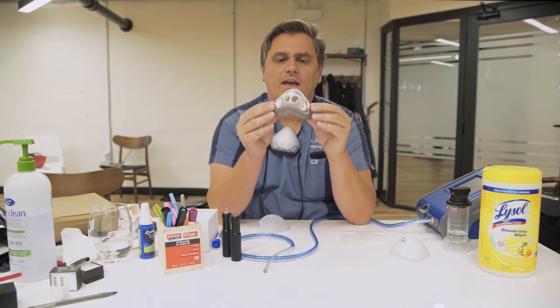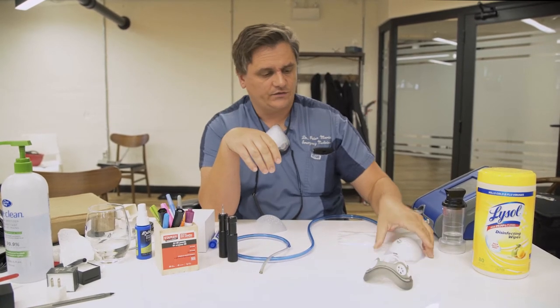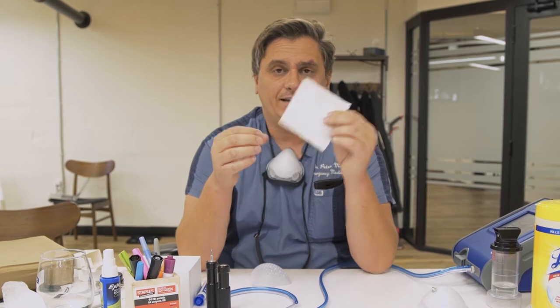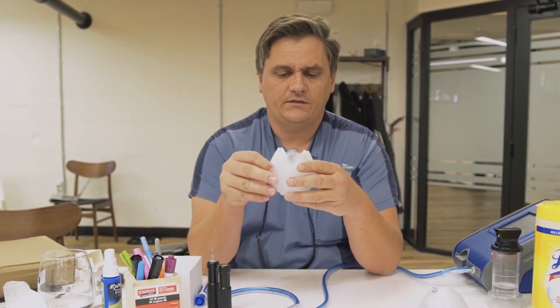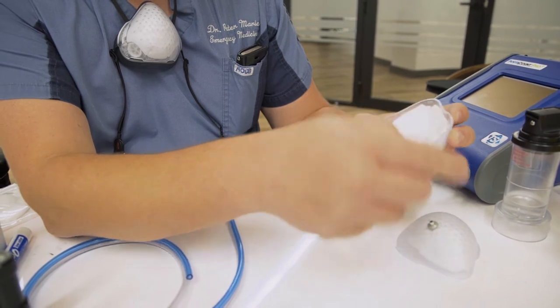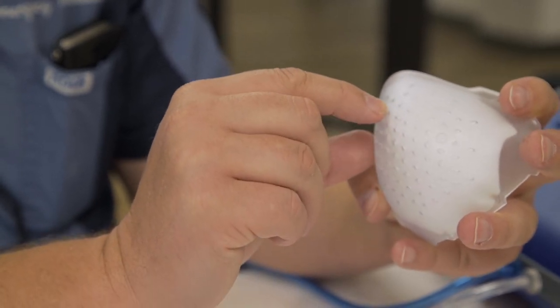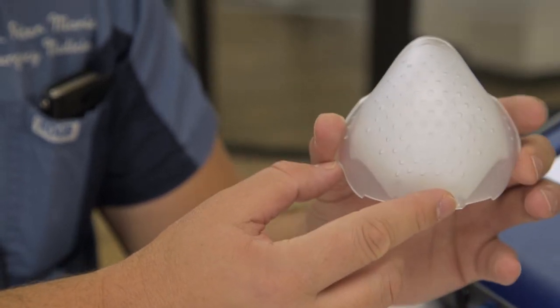Nothing else changes about the O2 curve itself — it's all the same. First, you're going to take out a new filter for every single mask fit test. In this case I have a brand new normal O2 curve filter. The side with the clear plastic goes out on the shell, so I'll pop it in this way. As I slide it in, there are little tabs that guide exactly where the filter should sit inside the shell — it should meet along the midline. On the other side, that midline should intersect the three central holes right along the side, down the middle of the shell. That's how you know it's in the correct place.